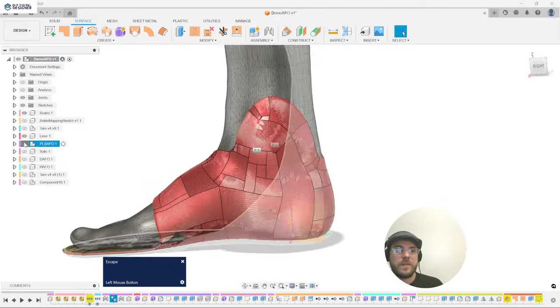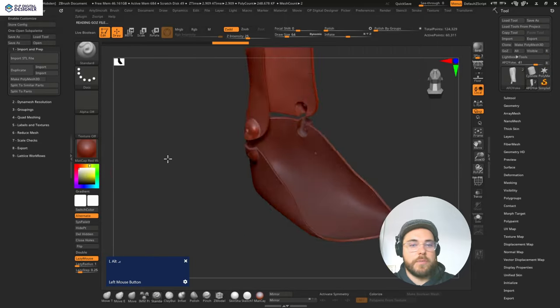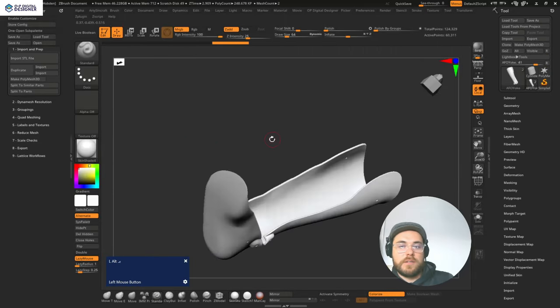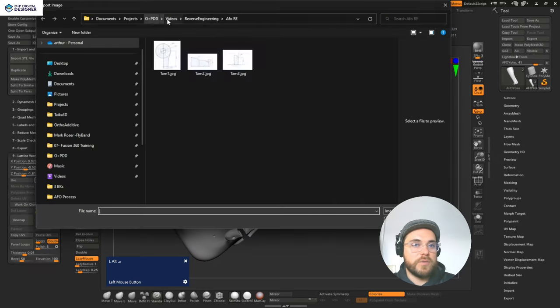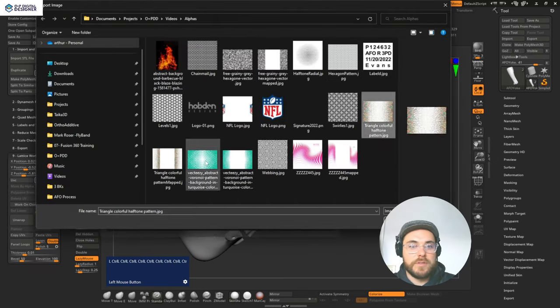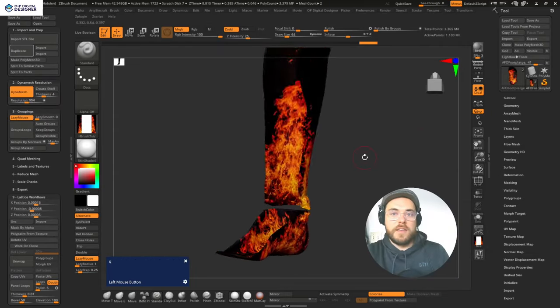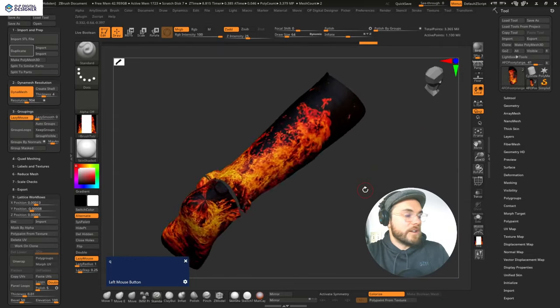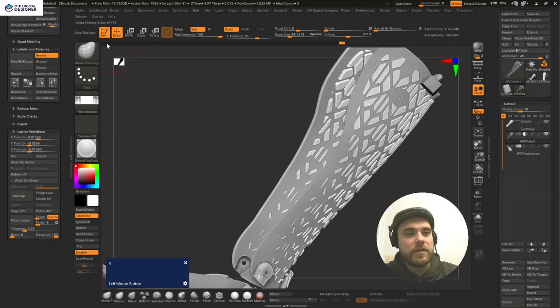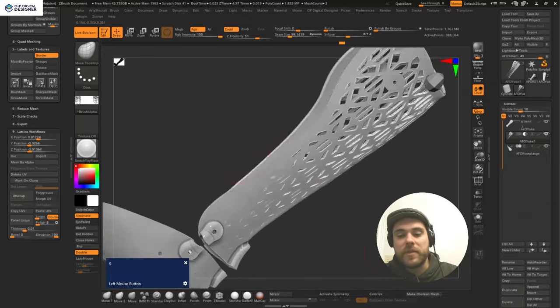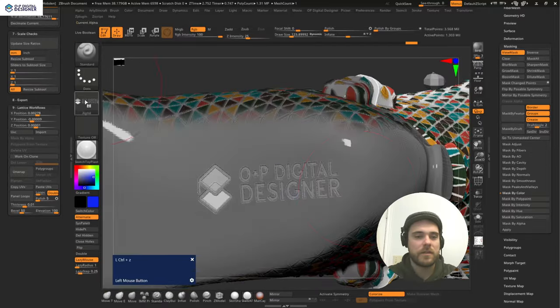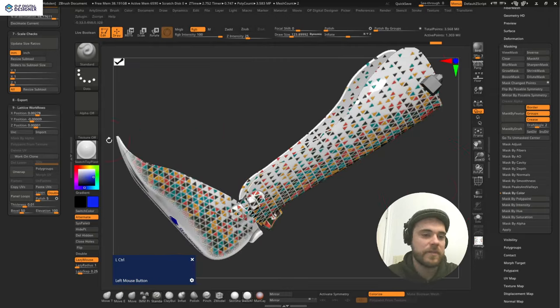We also then sit down and explore how ZBrush can complement traditional CAD design by taking CAD-ready models for 3D print back into ZBrush to explore some of the more exciting features that it can offer, which include workflows for full-color printing on MJF prints, creating lattice structures for bespoke padding or offloading, adorning designs with logos and textures, and more.